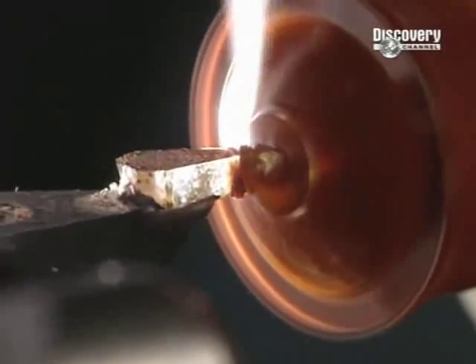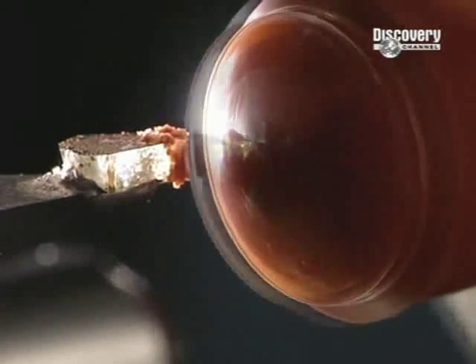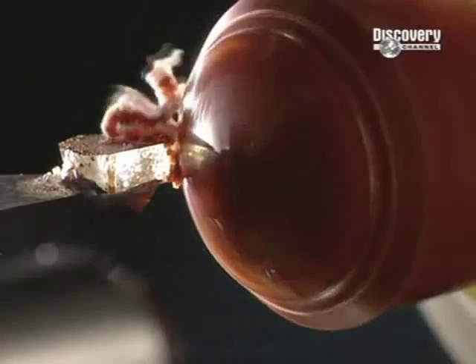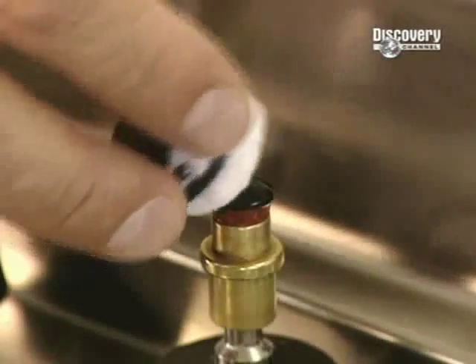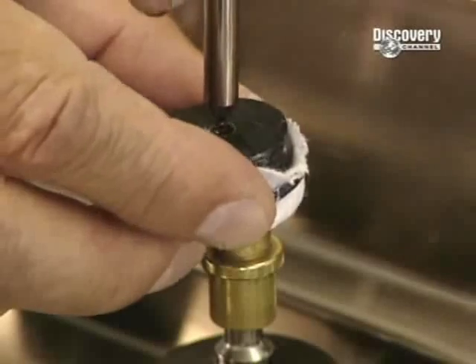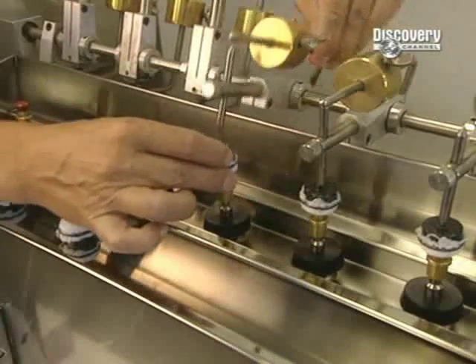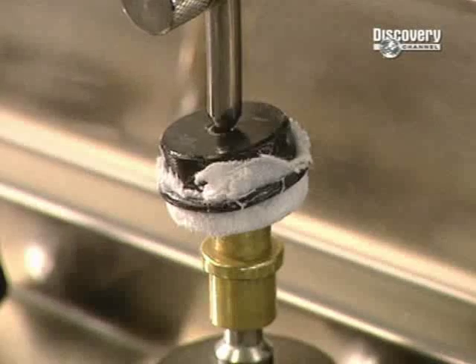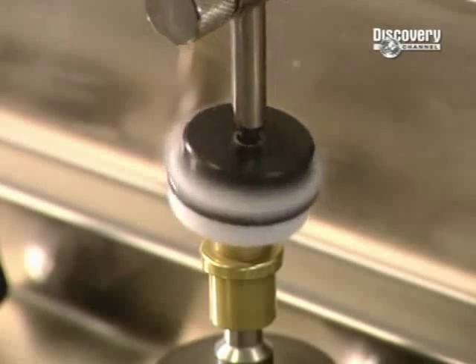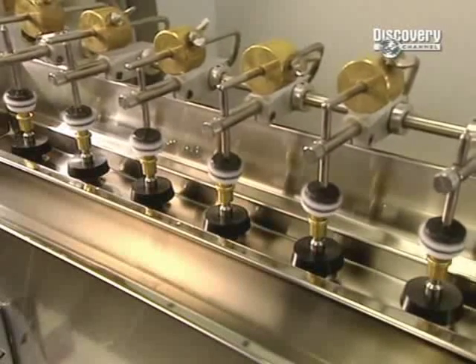The outer diameter of the lens is now shaped as the computer-controlled arm effortlessly cuts away the excess polymer and is polished. This polishing, done at high speed, calls for an abrasive paste, some oil and a small polyester cotton-like ball. This apparatus polishes several lenses at a time, a step that takes only 60 seconds.